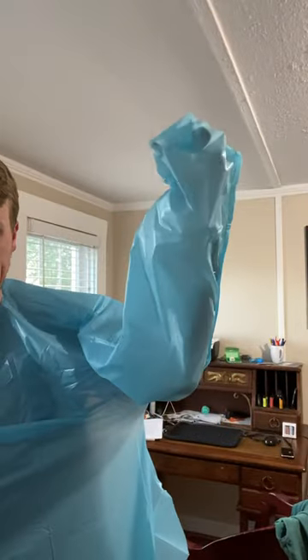So here's what you do. You hold the bag in your hand while you're putting the gown on. Head through here — I still have the bag in my hand. When you're putting your arms through the sleeves, you let go of the bag. My hand's open now. And then you stick your hand out. That plastic bag is sitting right here in my sleeve. It's safe. It's out of the way. It's not going anywhere. And now my hands are free.